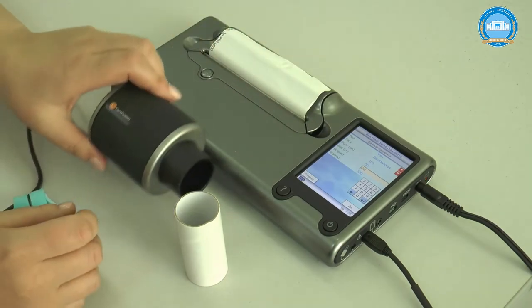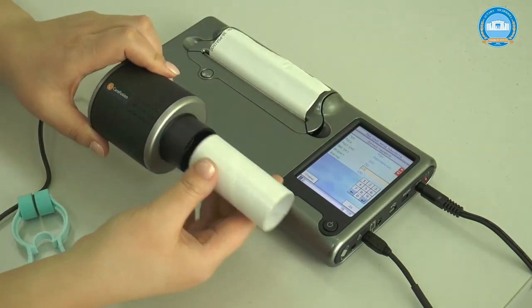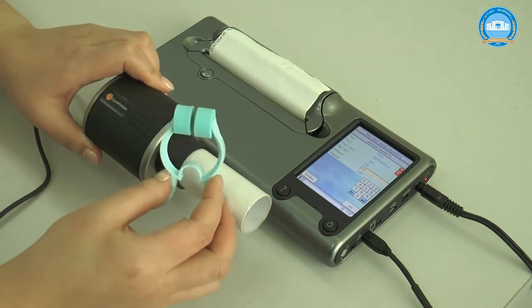The spirograph consists of an interface, an individual mouthpiece for the patient, and a nose clip.